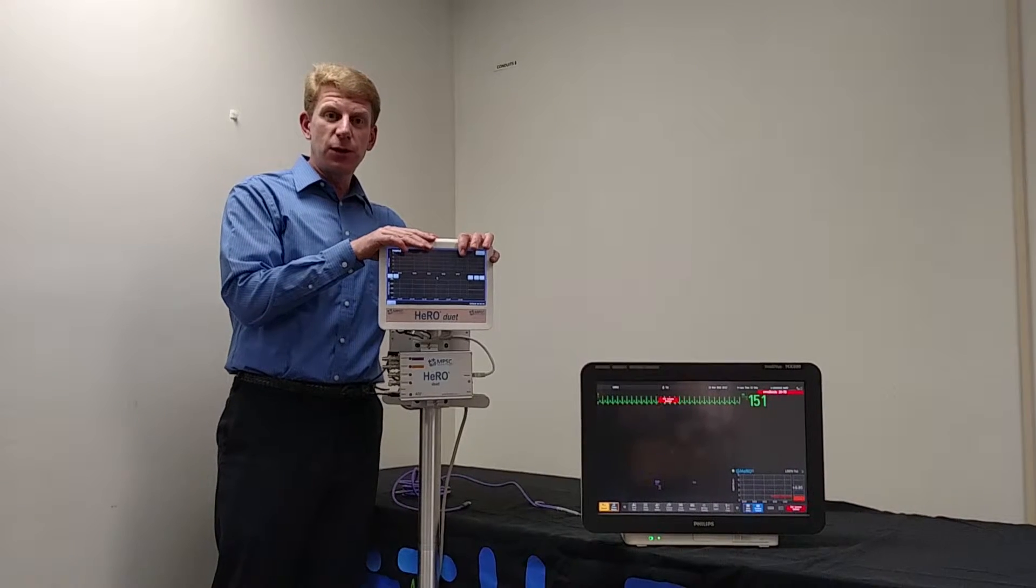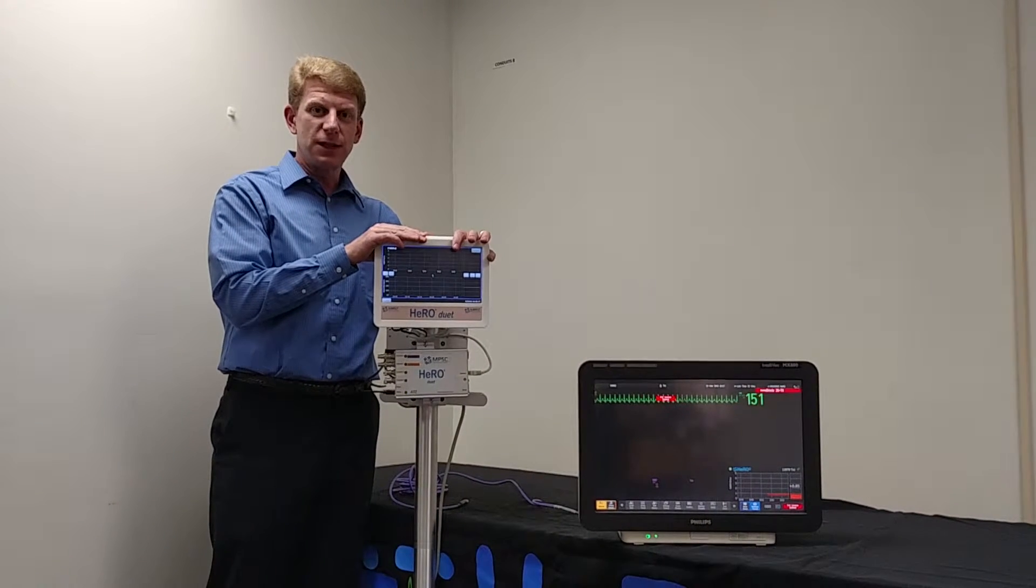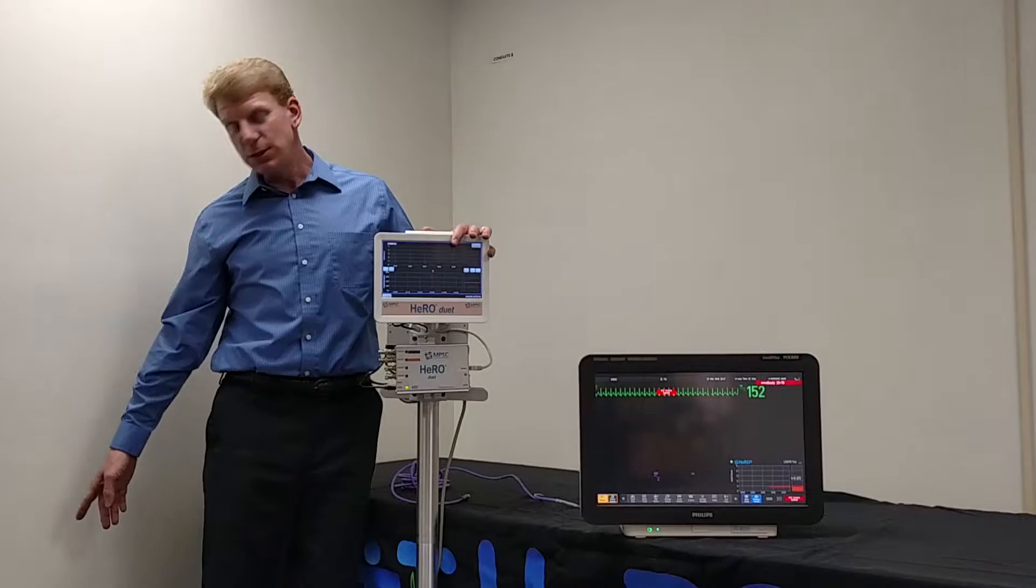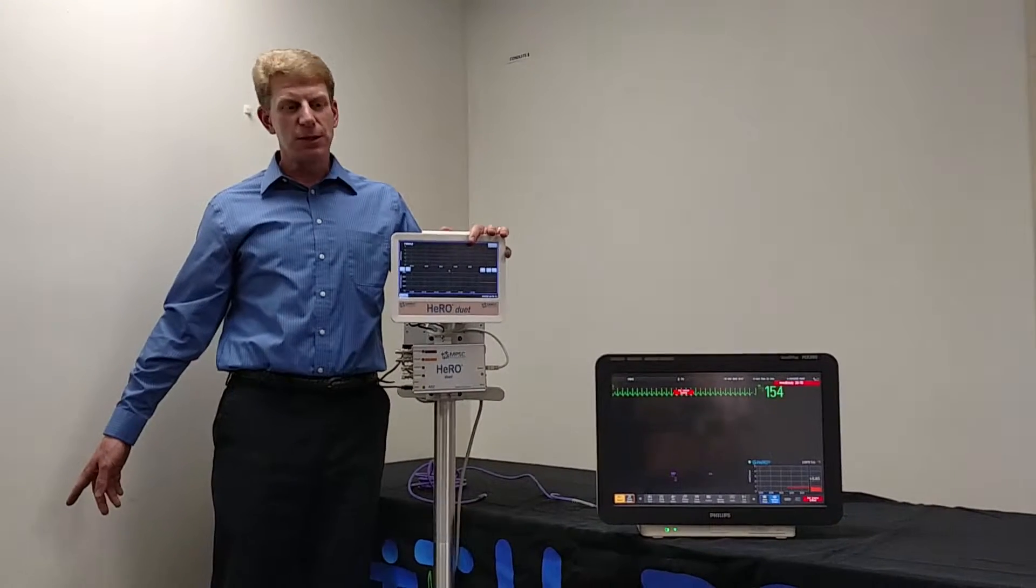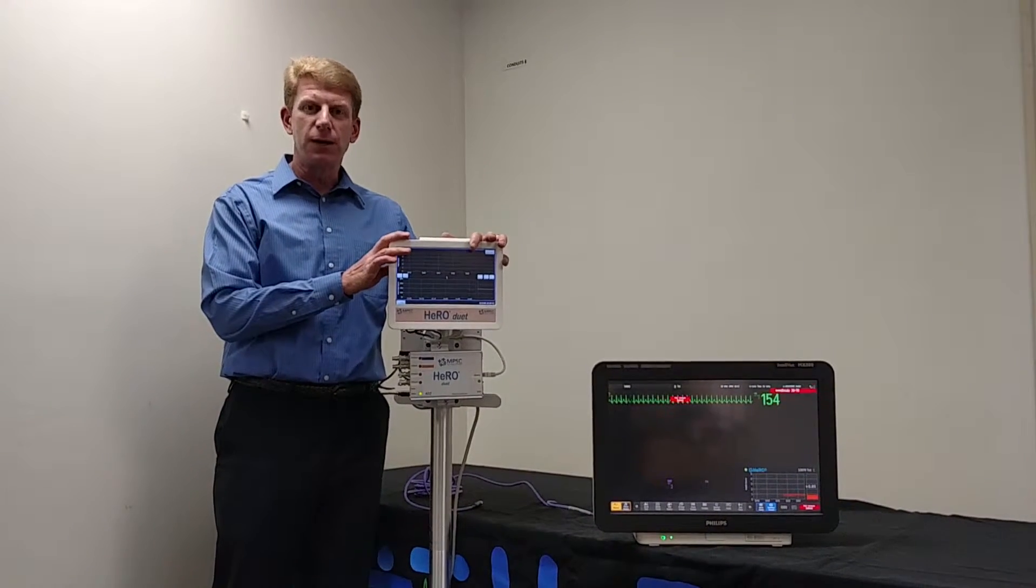We'll start with this is actually a Hero Duet, currently operating as a Hero Solo. I've already plugged it into the wall. The first step, of course, is to plug it into the wall. The machine will turn on automatically when it is plugged in.